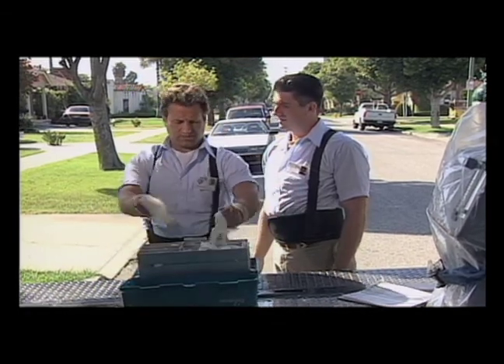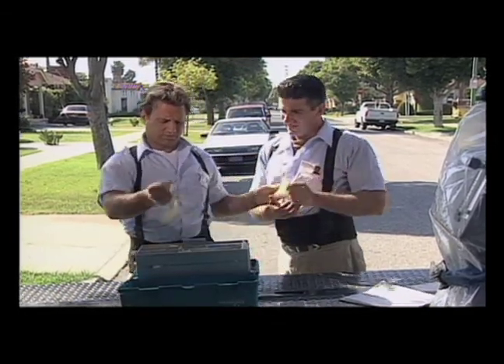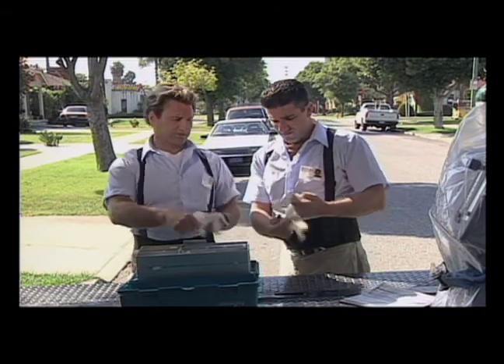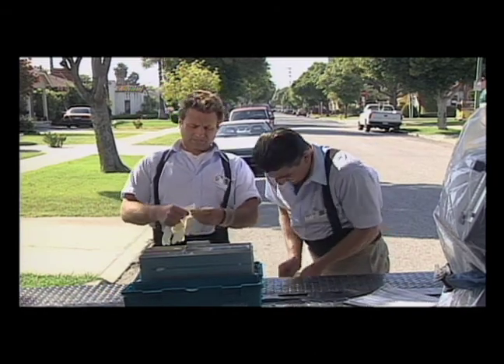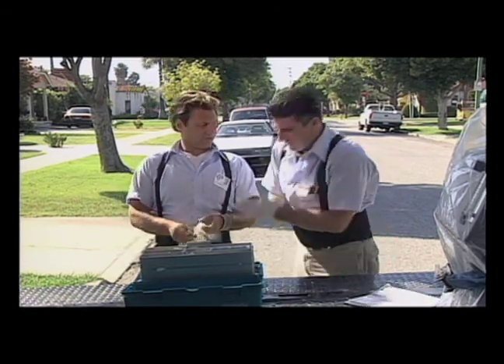We're going to need the PPE. PPE — Personal Protective Equipment — that's another term for protective barriers. So let's put on the gloves here because we know we're picking up a suction machine. Let's not put anything else on until we go inside and check it all out.